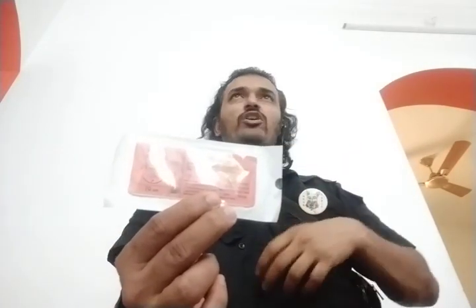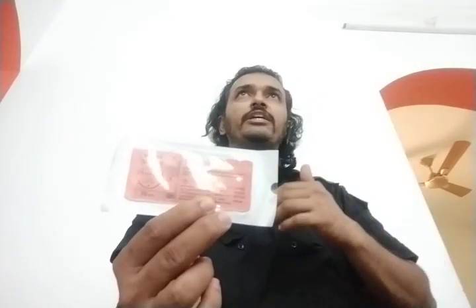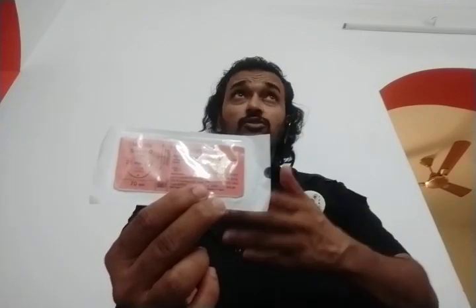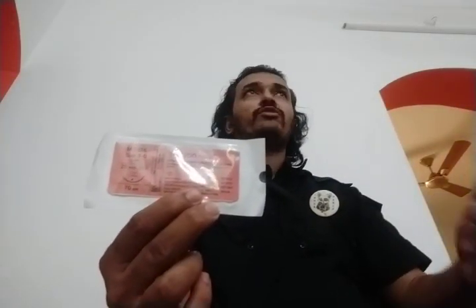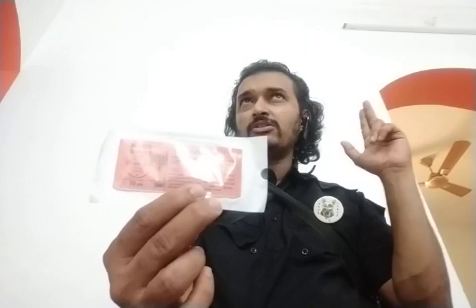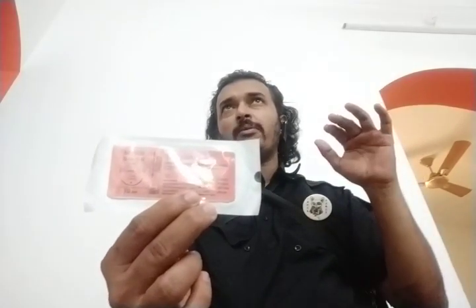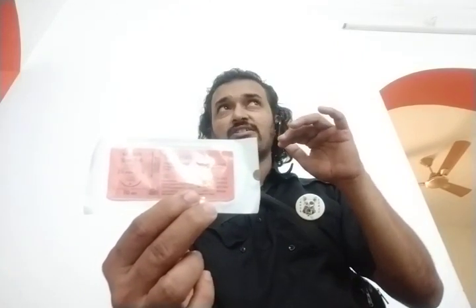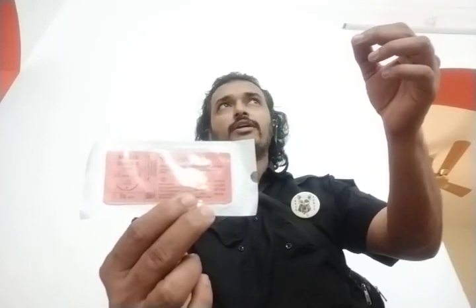Cats react with catgut, so we should not use catgut in a cat. They are also developing reactions to PGA — they are very sensitive, with fat necrosis as a reaction. When we started having a lot of problems with suture materials and worked through it case by case, with input from overseas vet experts, they suggested using monofilaments. Monocryl has the benefit of being a non-braided monofilament; it has reduced the problem of reactions and infections. However, we lose 50% of the strength in a week's time and 70% in two weeks.